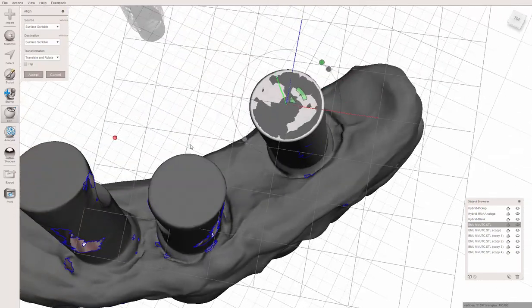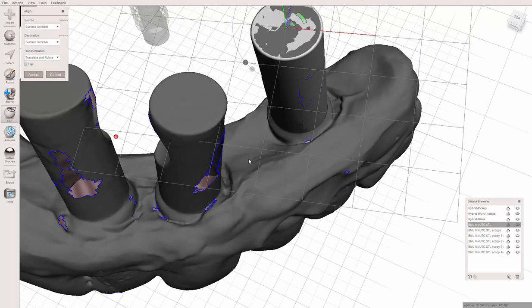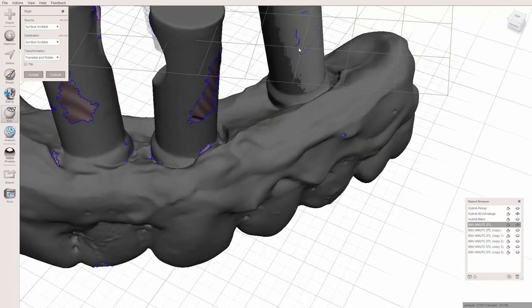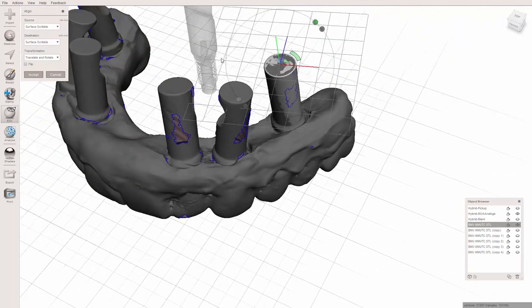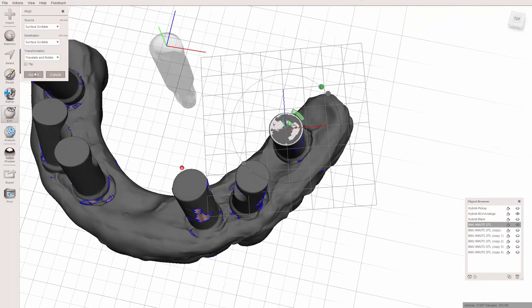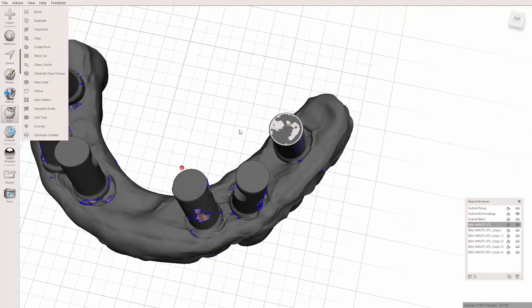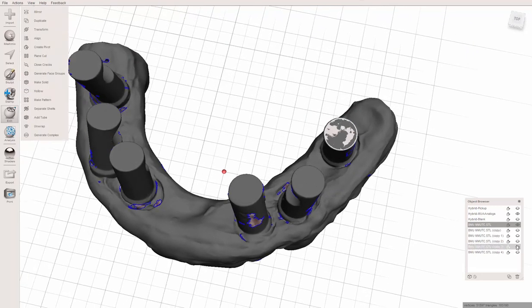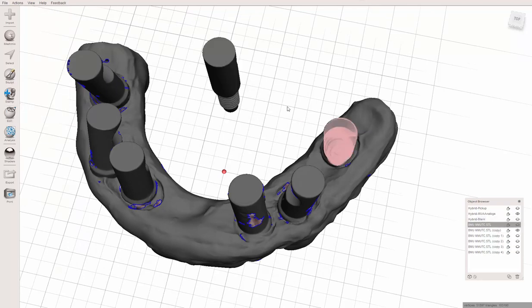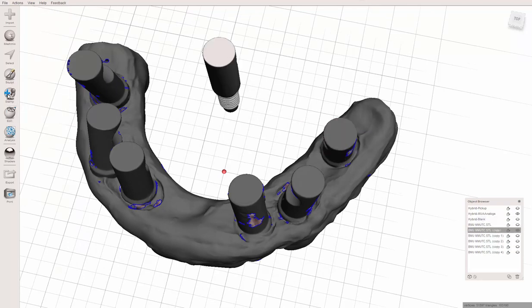Here's where it's not perfectly precise - it just lines up flat to flat. You still have to align it here. It doesn't take a lot of work and we're getting really close, not perfect. That's why Exocad, 3Shape and BlueSky Plan having the ability to align this flat and the body will be even better. So that is really all there is to it.